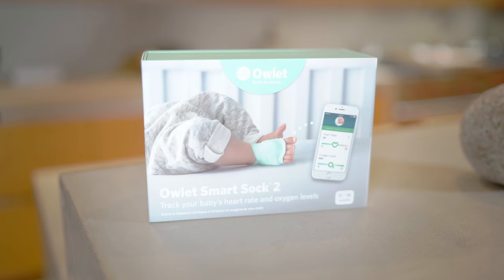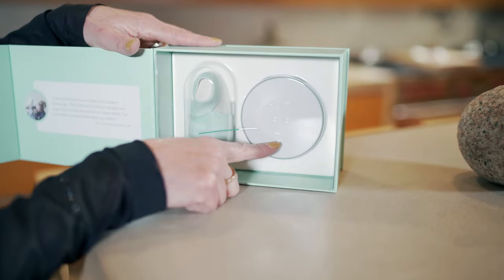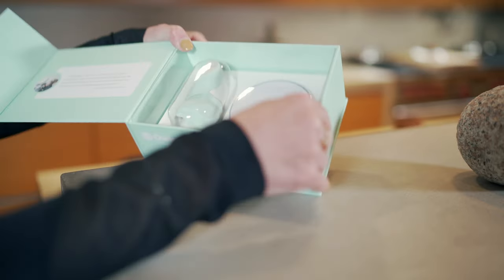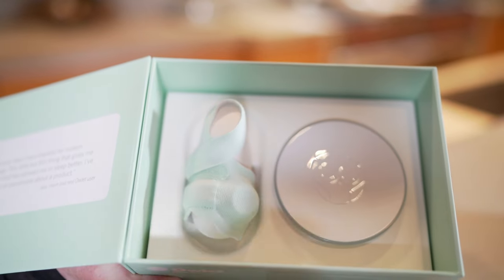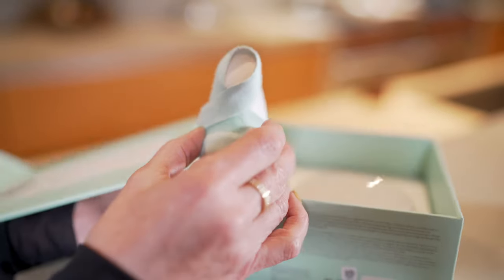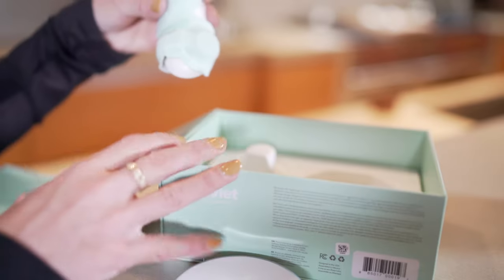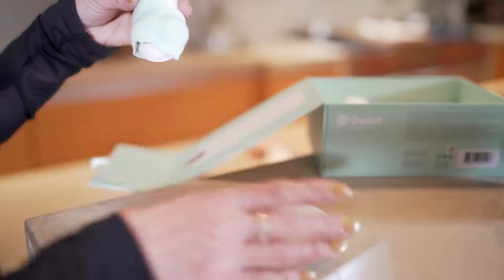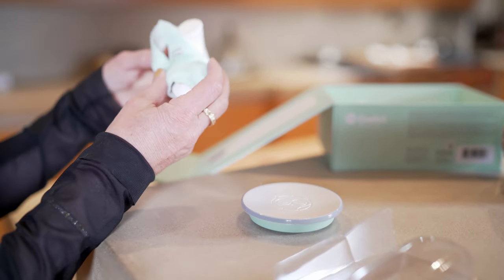What we're going to be really looking at today is the smart sock that goes on the baby's ankle. We're going to look at that little connection and find out how much RF radiation there is. So that's the base station and that is the baby sock. The presentation is lovely — that's so cute, and that looks like a little baby plate. Lots of points for design.